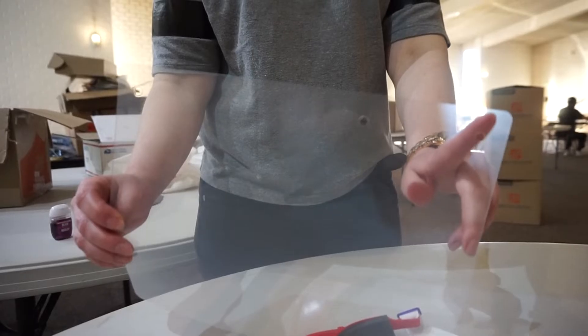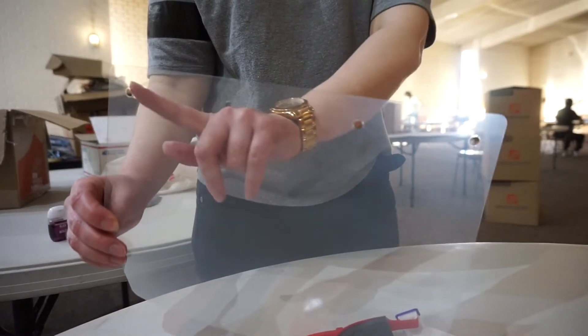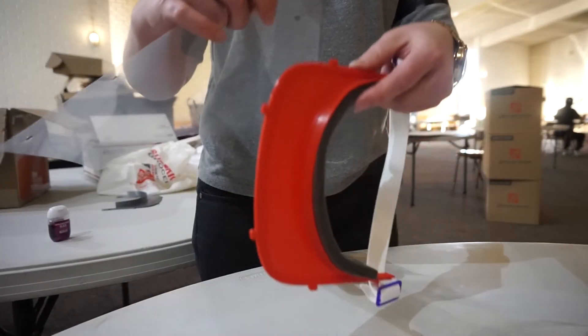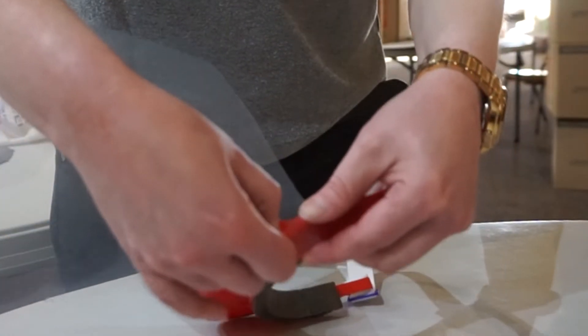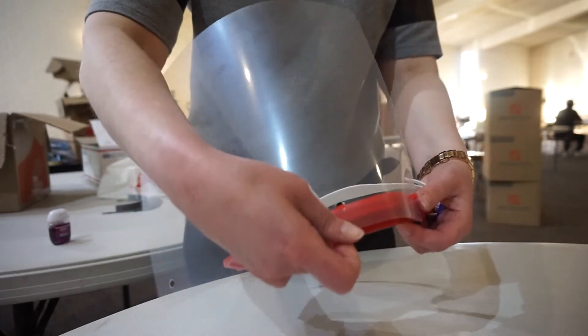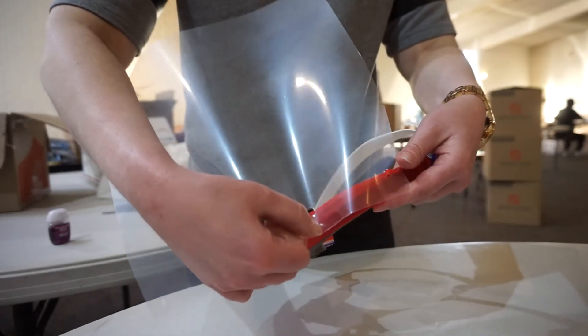To attach the clear shield piece, which should have four holes, start from the end. You'll want to hook one side of the tab into the hole, then pull the sheet down across it until the other side pops in. Continue across the shield until all are in place.